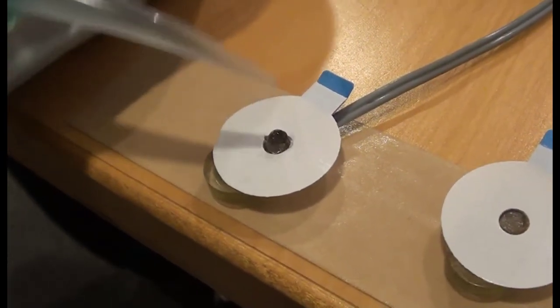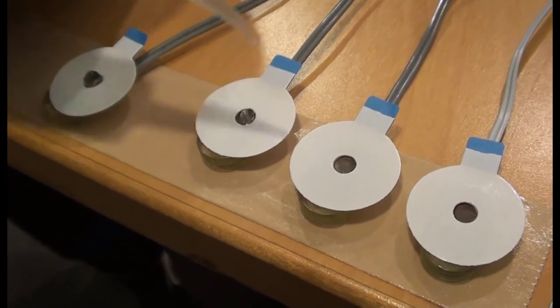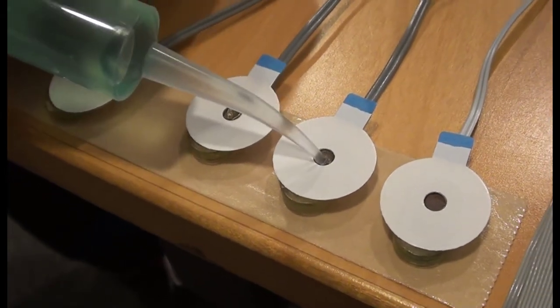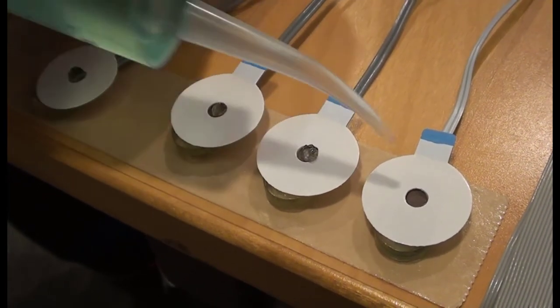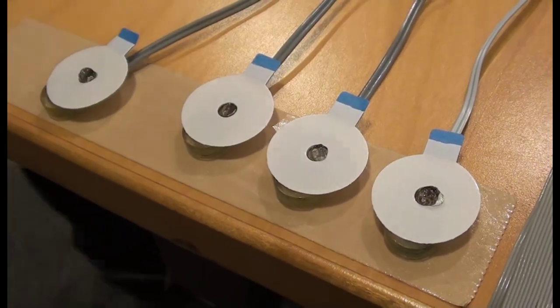Using double-sided tape is a good way to hold the flat type active electrodes in place while you apply double-sided adhesives and gel. Remember to invert the electrodes on the tape in the order you want to apply them so that you don't need to inspect them. Just grab the next one and go.